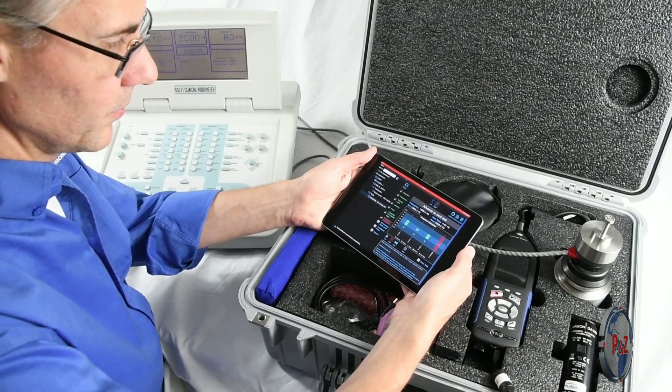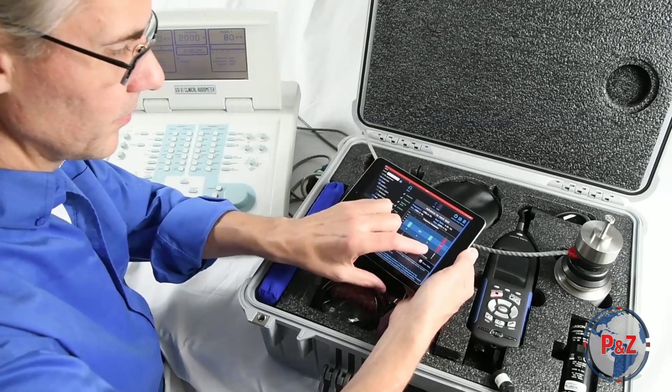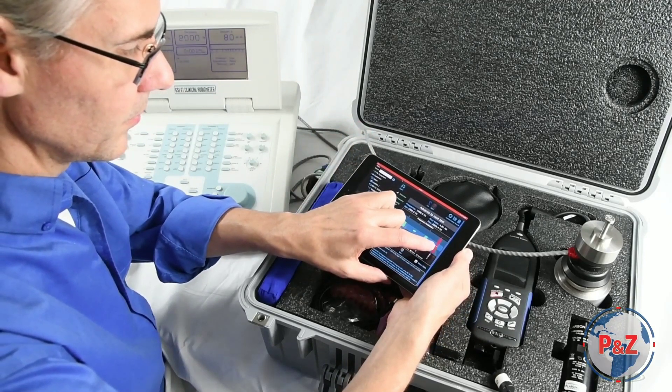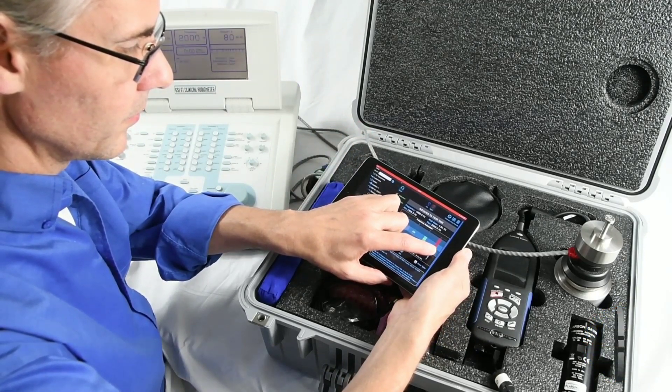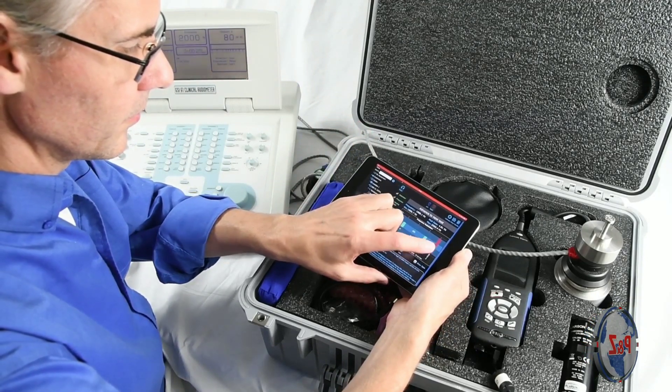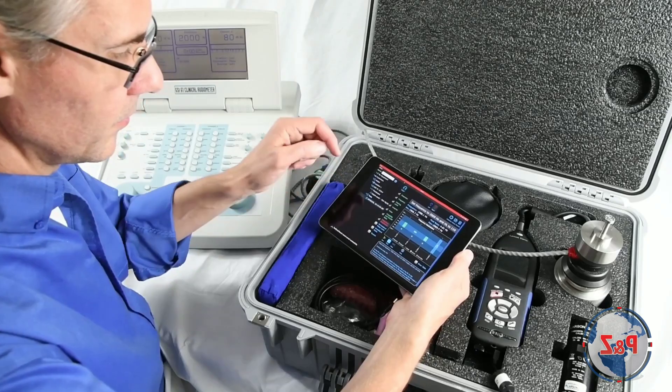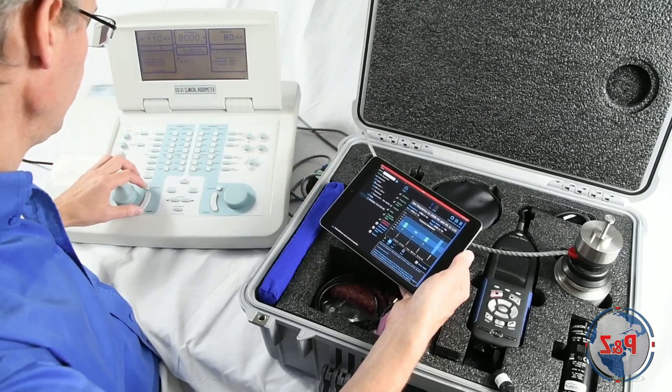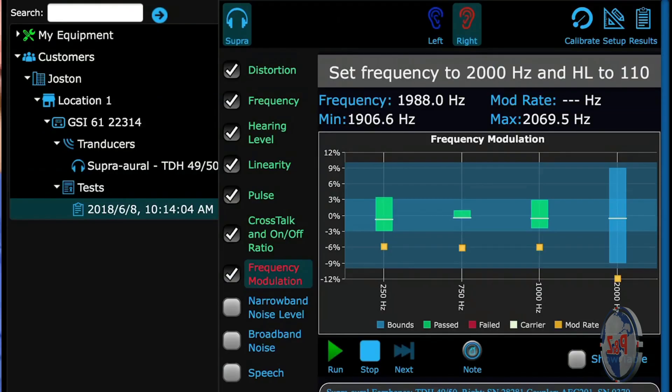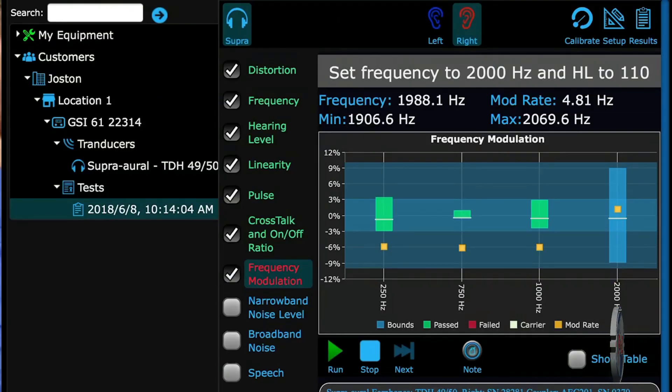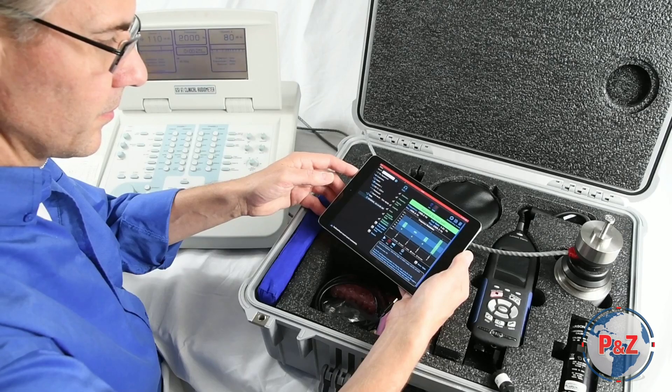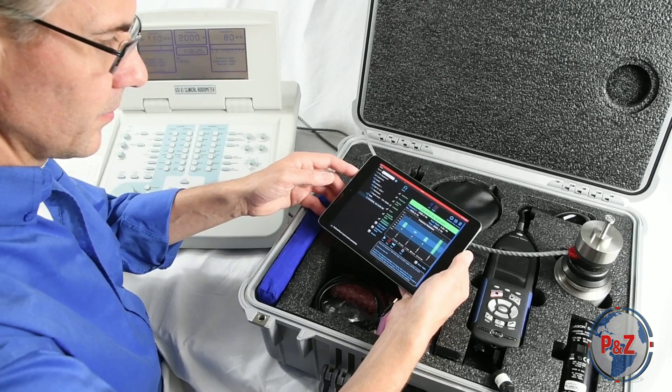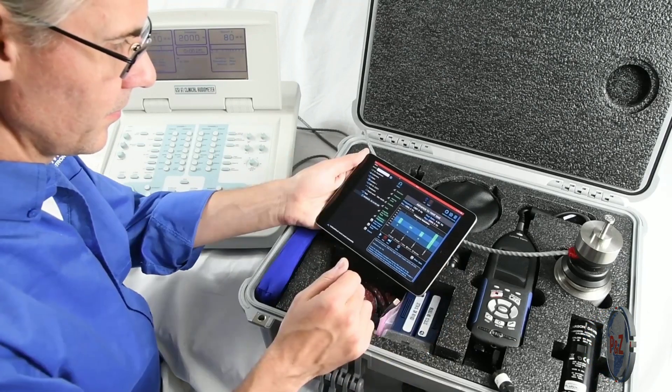You don't need to retake a whole test if only one step fails. In a stopped state, do a long tap on that step to redo it. If it's not the last step that you are redoing, press stop when you're done.